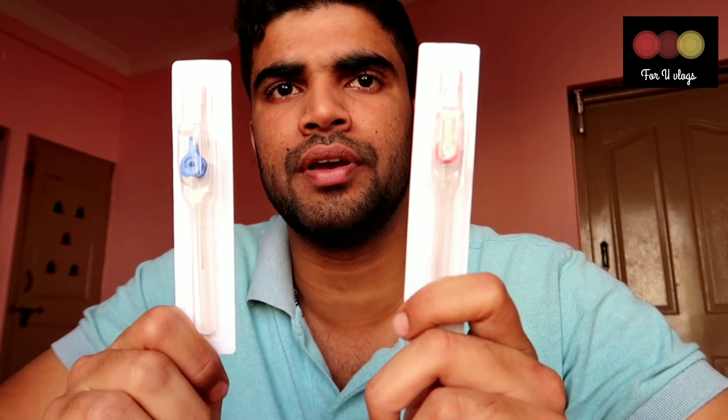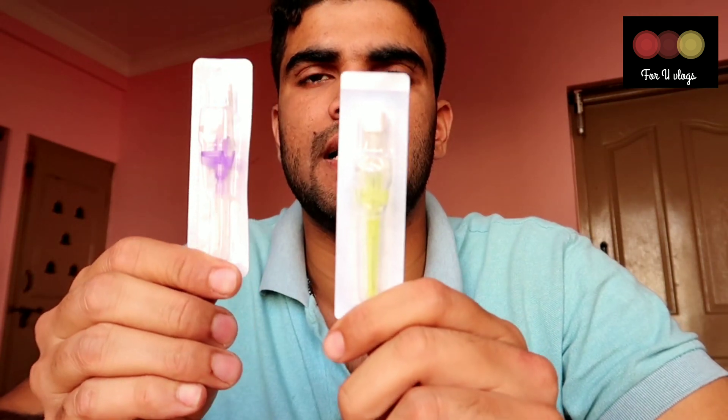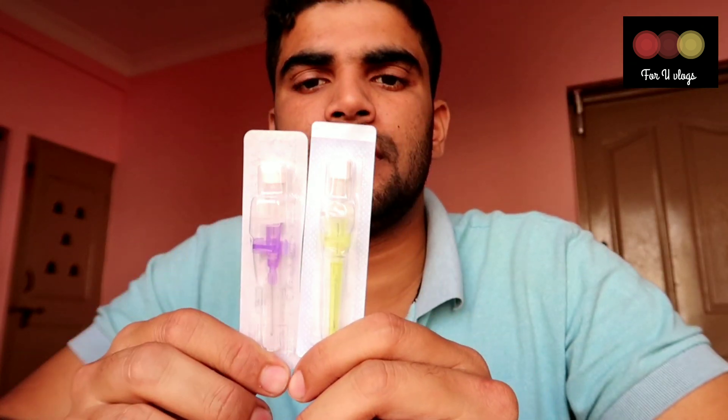When a patient needs a little fluid, the blue and pink sizes are appropriate. For newborns and babies, a smaller size is used.